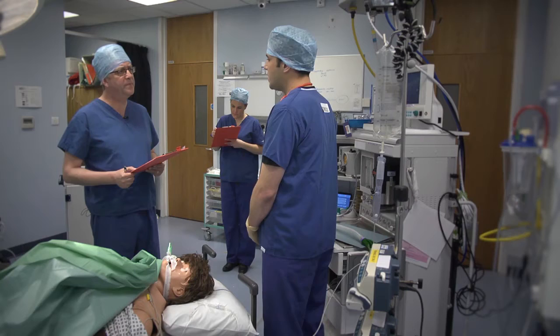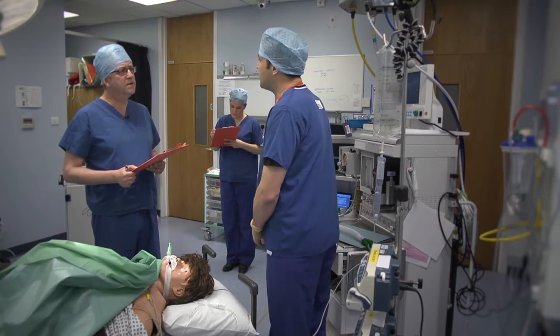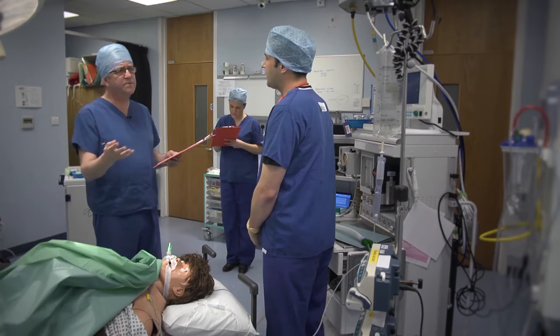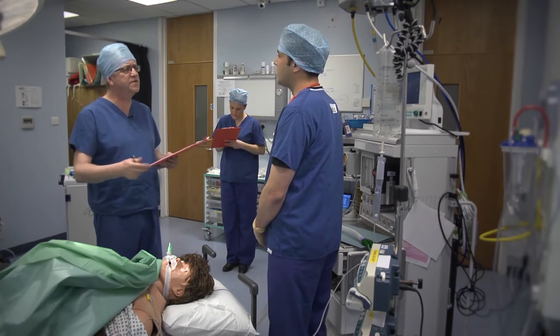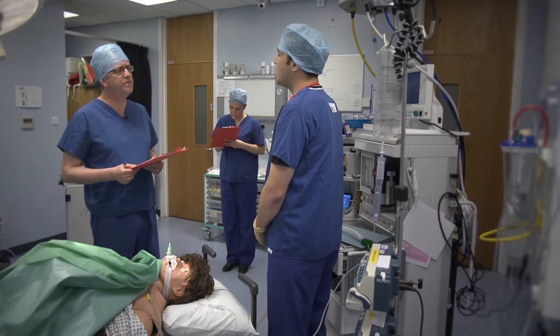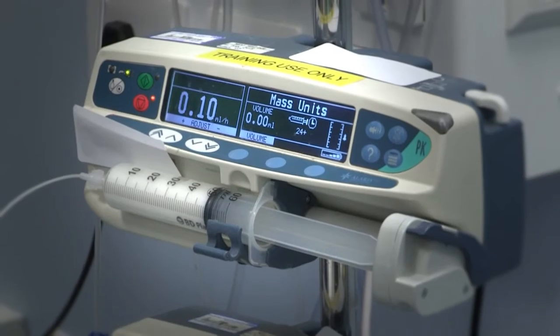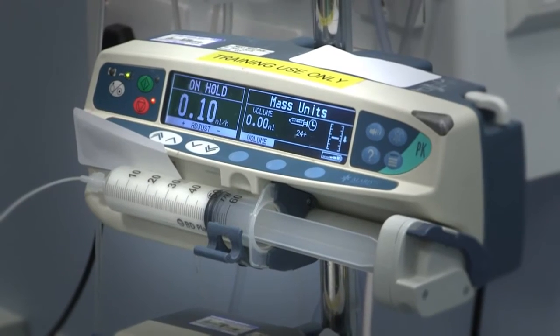Now that the alarm has been resolved, I would like to ask you some questions. Did you have any difficulties resolving this alarm? Yes, I did actually. I found it quite difficult. What things were difficult to do? I found the screen was quite hard to read and I wasn't quite sure on the sequence for the buttons.